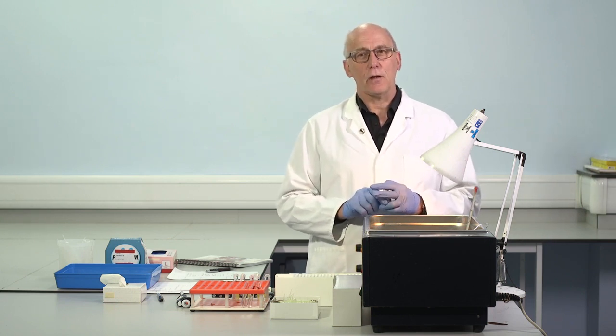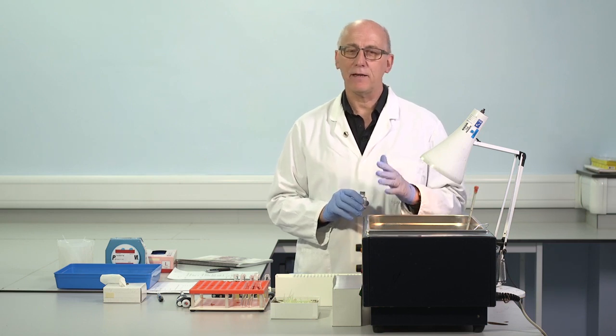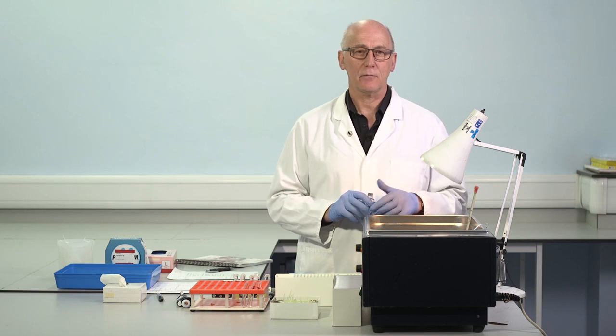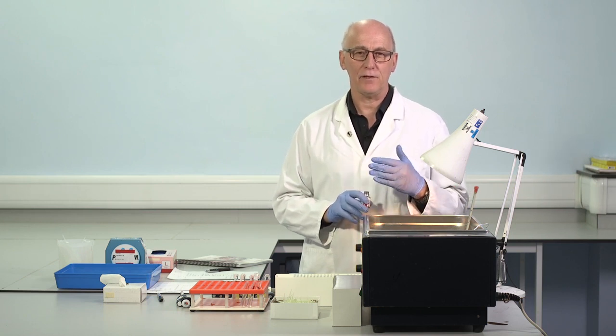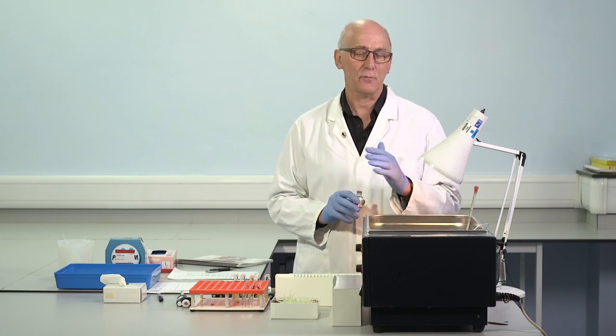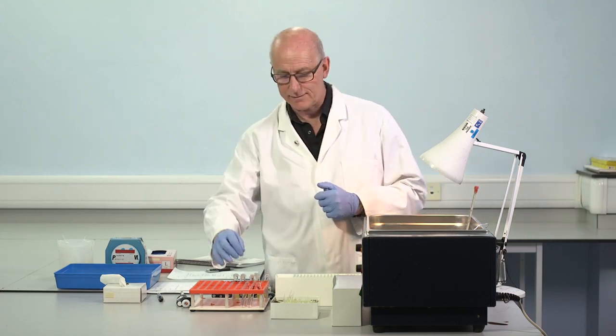It's important to choose an appropriate secondary container. For many plasmas and some reagents, we noticed that the reagents are less affected if they're moved into secondary containers comprising plastic, and sometimes there can be problems with some types of glass. So I'm going to use plastic tubes on this occasion.